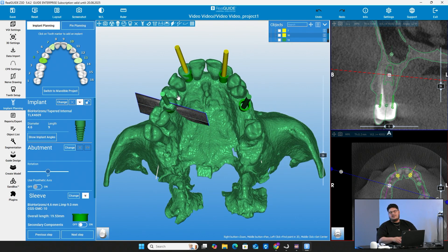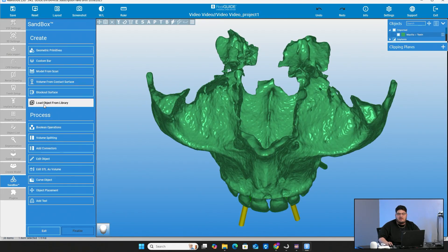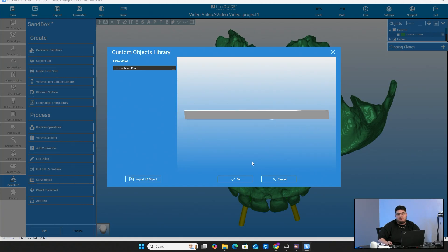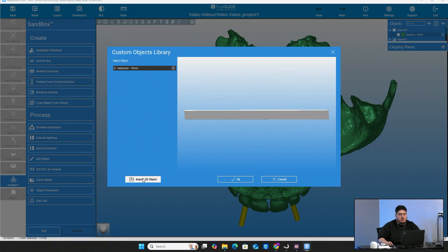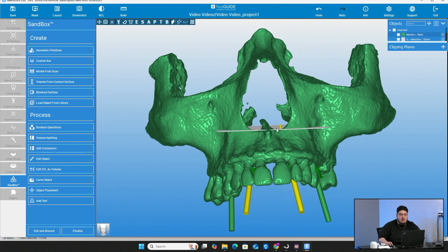For this step, I just want to show you guys how to actually cut the bone. I already placed implants and have everything in there. Now what we want to add is our bone reduction cut line. Go to the sandbox tool on the left side at the bottom left, second to last option. Go ahead and bring in your bone reduction cut plane. When you go to sandbox, you'll see an option that says load object from library. Select that and you'll have a bone reduction plane. If you don't have this plane, you can download it from RealGuide's website — it's just an STL of a plane. You can import it via the import 3D object button at the bottom. As you see, it places the plane in a random area — it doesn't necessarily align with your implants. That's what we're going to do next.